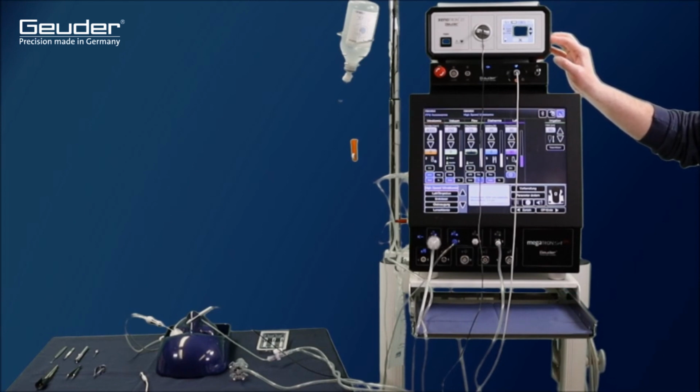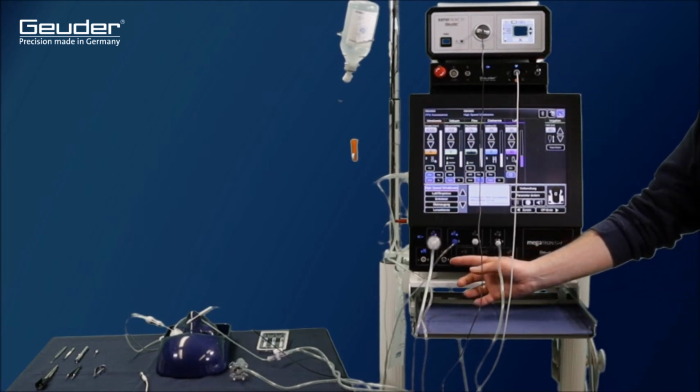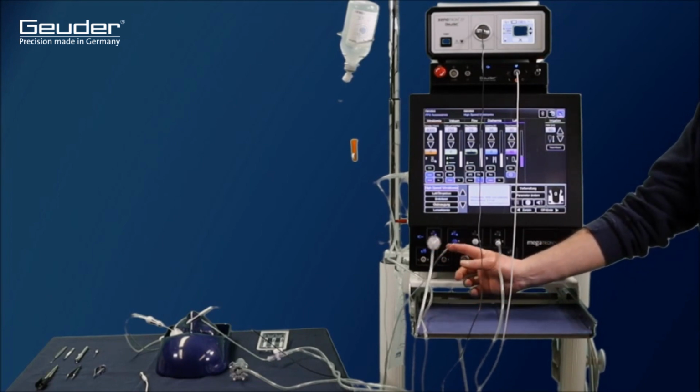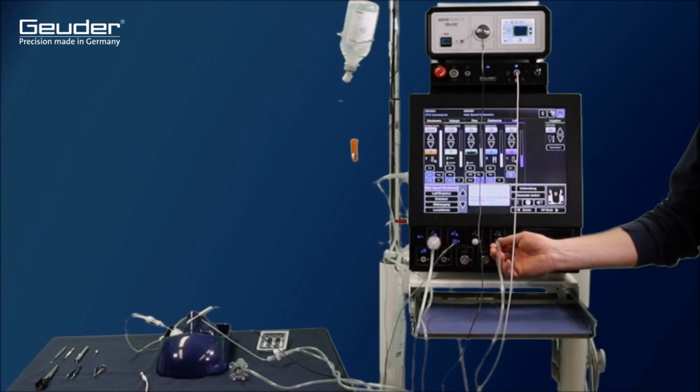Below the touchscreen of the Megatron S4HPS are the connection sockets intended for connecting the device accessories. Port 1 serves to connect the filter of the air injection system with a pre-connected three-way valve. The blue compressed air connector of the pneumatic vitrector is to be connected to port 2. Finally, the oil injection system is to be connected to port 4 via a bayonet lock.